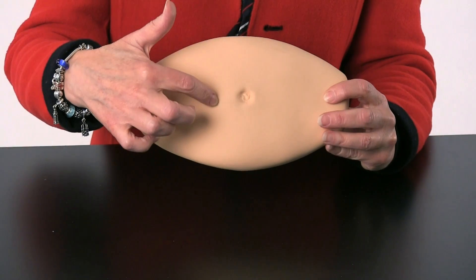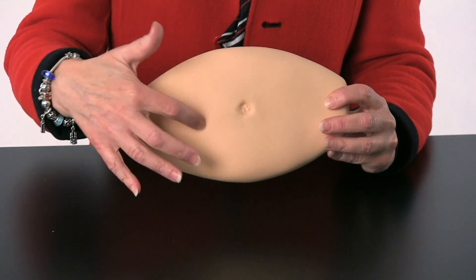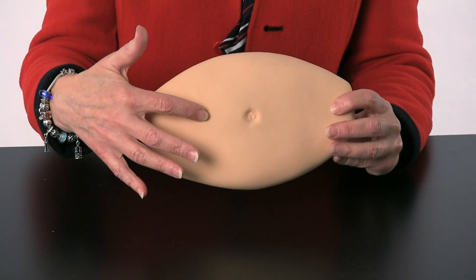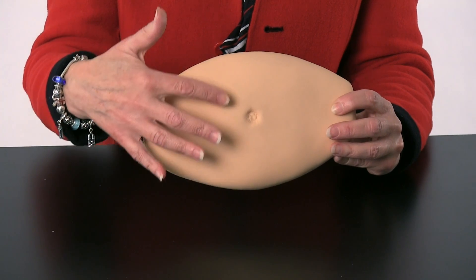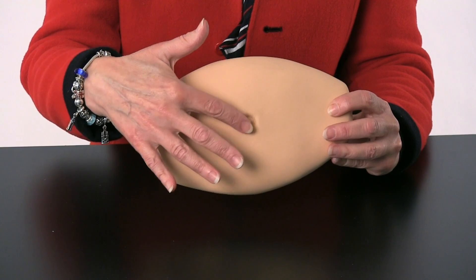This is the NASCO injection belly. It was originally developed to help patients learn how to rotate the infusion set for the insulin pump. They use the belly button as the focal point and rotate the infusion set around it, so we needed to have a pad that had a symbol for the belly button.